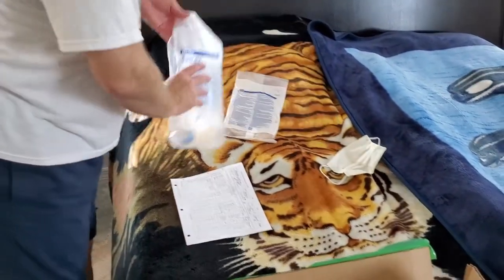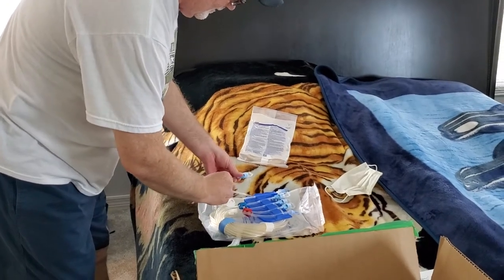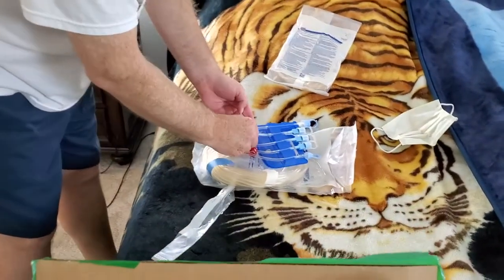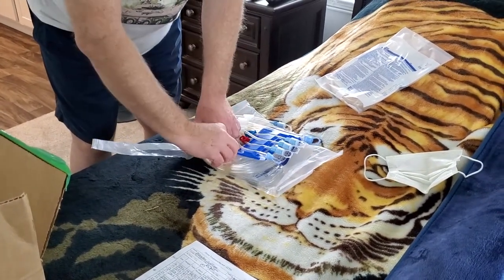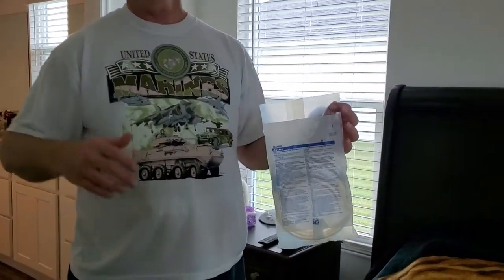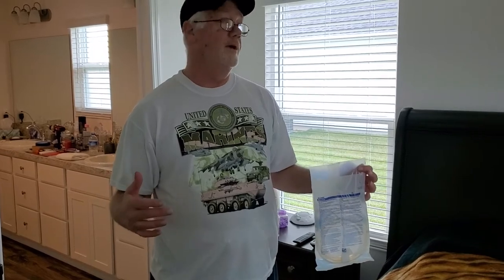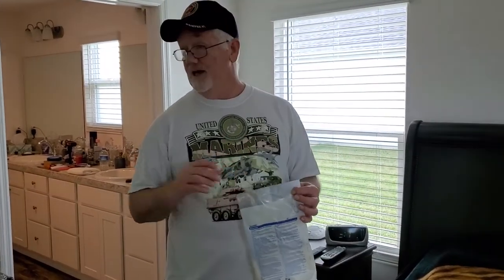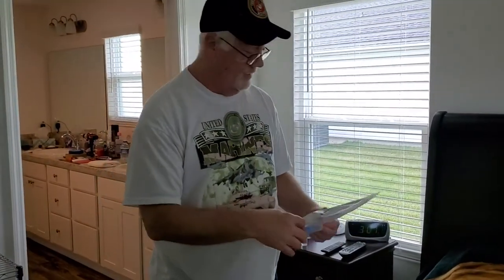While the machine's booting up, I can go ahead and open up my cassette and close the clamps, then just remove these little paper ties on here. This is a patient extension line — some people want to use them, some don't. You don't have to. I use one because it gives me another 12 feet of line so I can leave the bedroom and make it into the kitchen or living room area, so my wife can sleep. We'll go through that in this video as well.